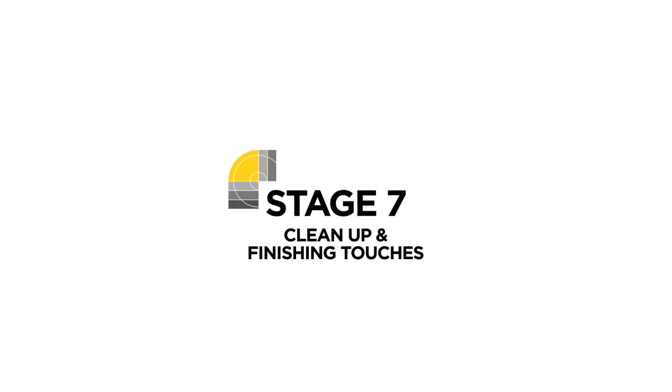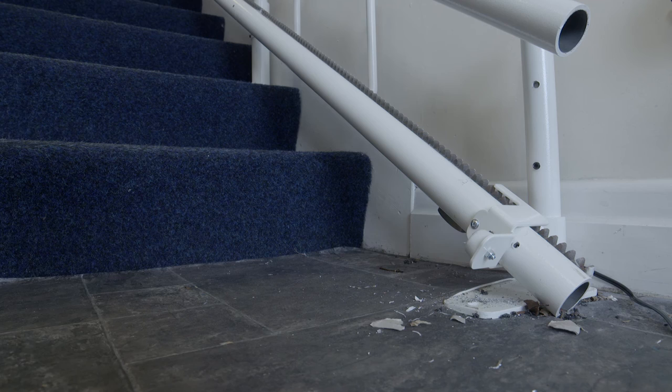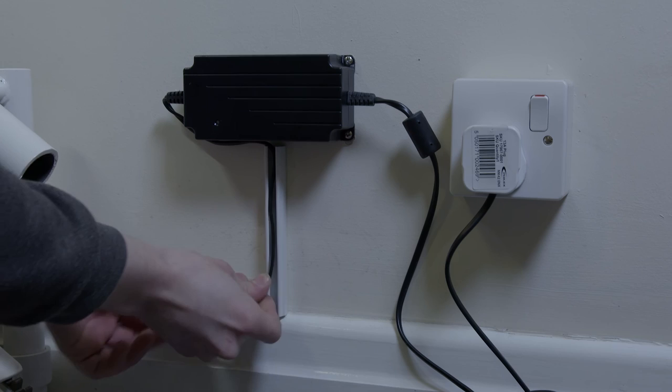Stage 7: Clean up and finishing touches. As many of your customers will be elderly, make sure you clean away any tools, packaging and rubbish before giving the customer a demonstration. Make sure to hoover in all the areas you've worked in, cleaning away any dust and dirt.